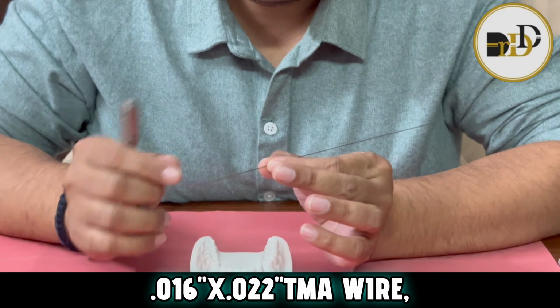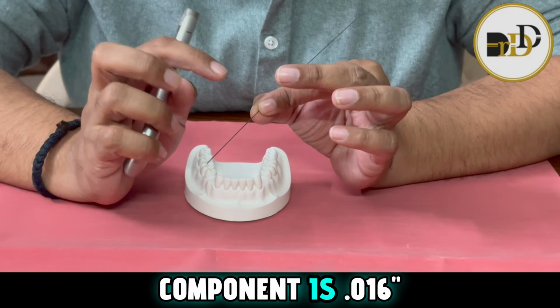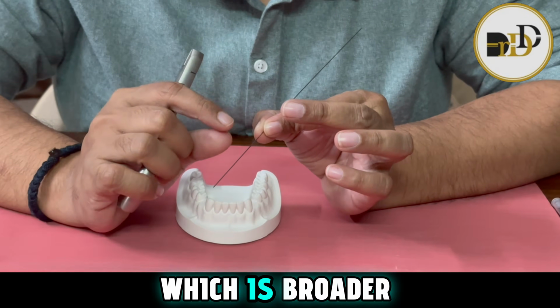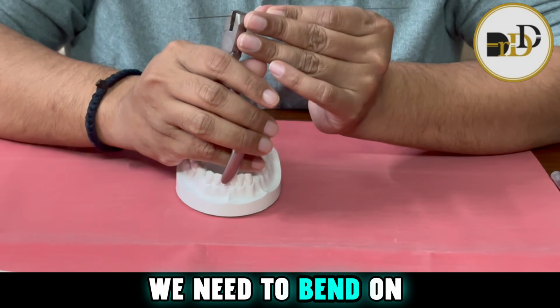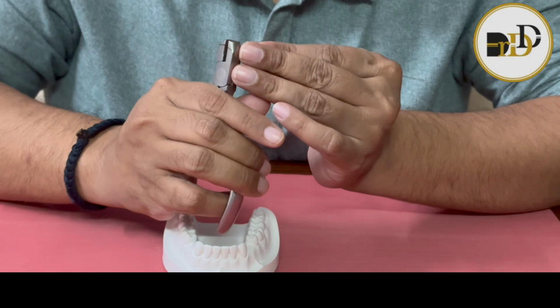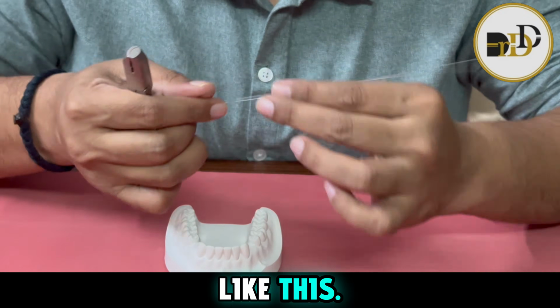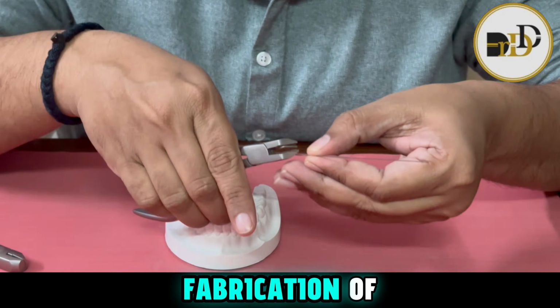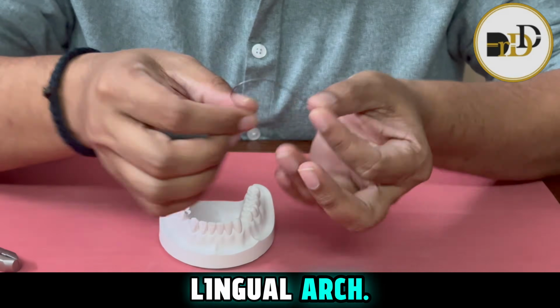The 16x22 TMA wire has a width and a depth component. The width component is 016, that is the thinner part, and the depth component, which is broader, is the 022 part. While we are doing the bending, we need to bend on the thinner portion, that is the 016 side. Like this. So this is the method for fabrication of the lingual arch.